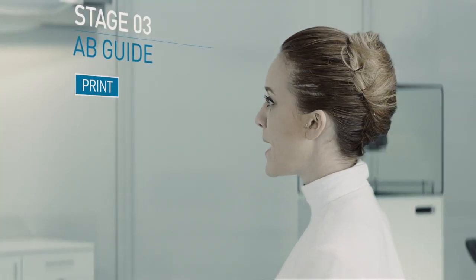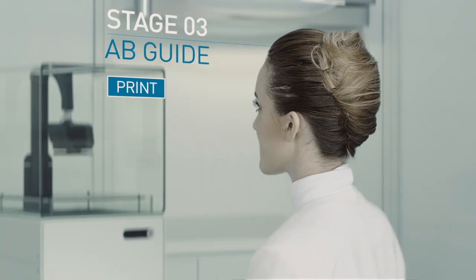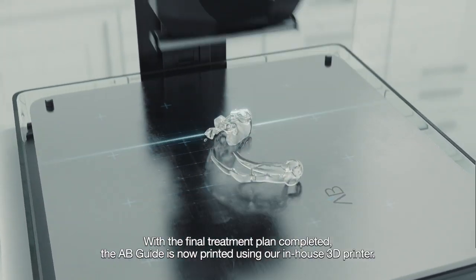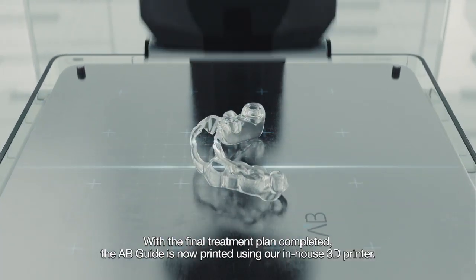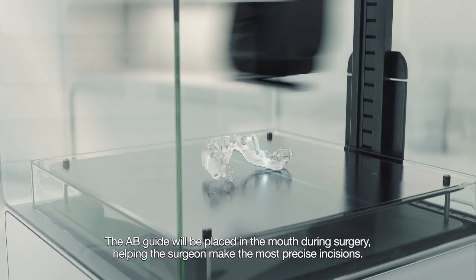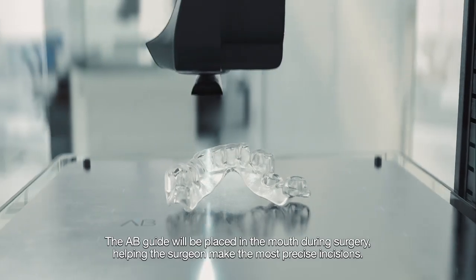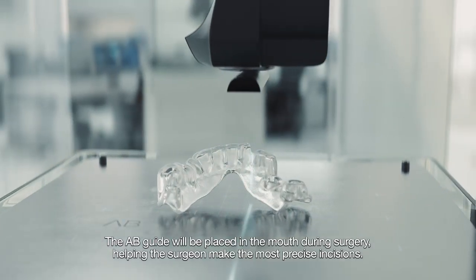Stage 3 – AB Guide. With the final treatment plan completed, the AB Guide is now printed using our in-house 3D printer. The AB Guide will be placed in the mouth during surgery, helping the surgeon make the most precise incisions.